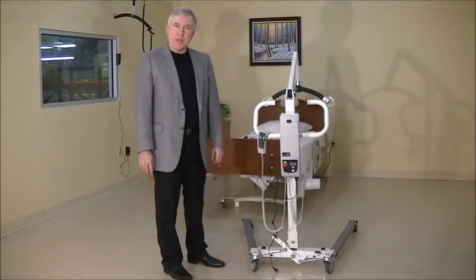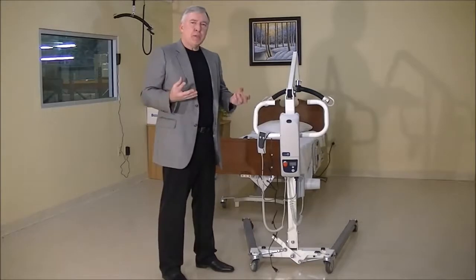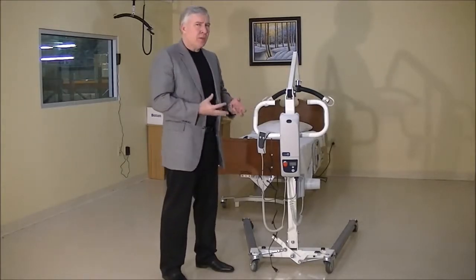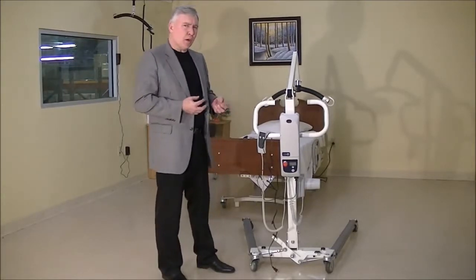Hey folks, Damian again here with Best Care. What I'm doing in this video is showing you how to troubleshoot your lift. Let's pretend you got this lift, you watched my videos, you know how to hook it all up, but things still aren't working right. We're trying to figure out what's wrong with the lift. Let me give you six or seven steps you can use to isolate the problem and get your lift working properly.